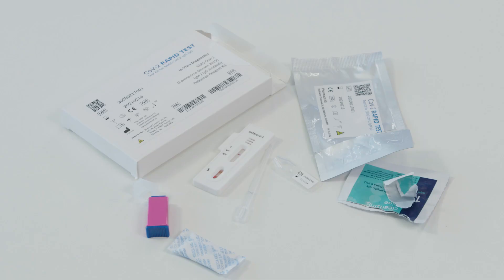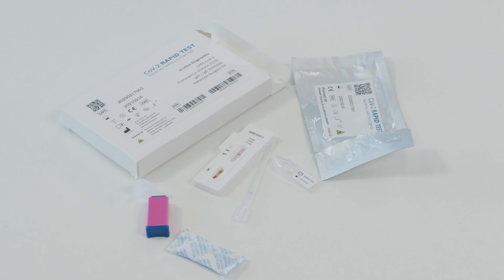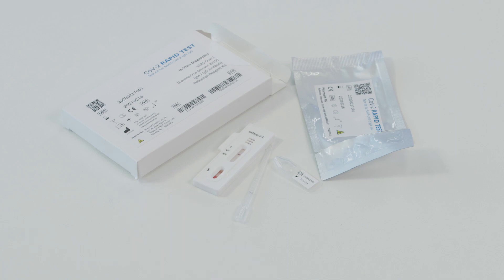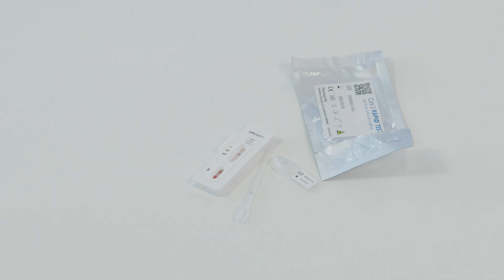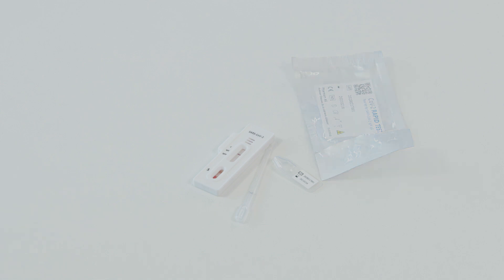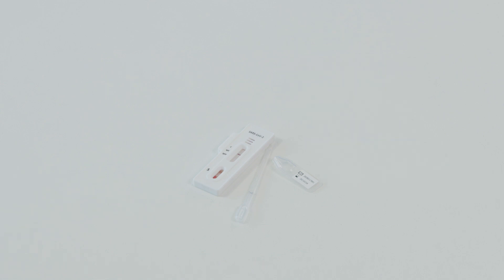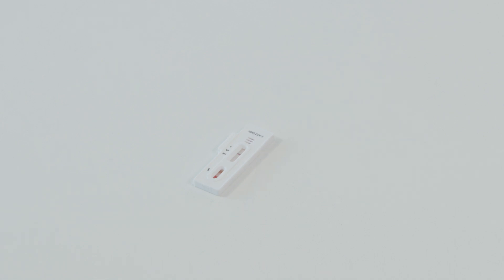Follow your clinical and/or laboratory guidelines in collection, handling, storage and disposal of patient specimens and all items exposed to patient specimens, including the items supplied with this test.